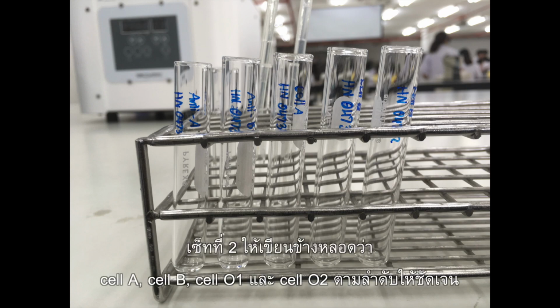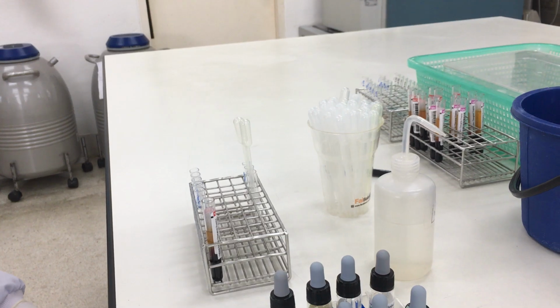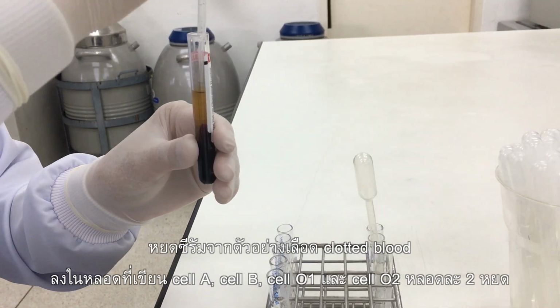The second set of 4 tubes for serum grouping label cell A, cell B, cell O1 and cell O2. Label sample number to all tubes. In a set of serum grouping, transfer 2 drops of serum to all tubes.